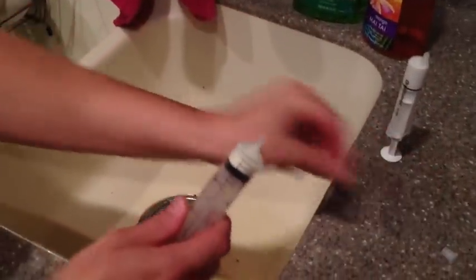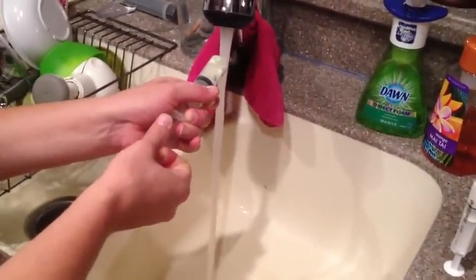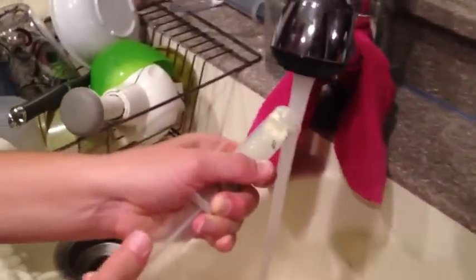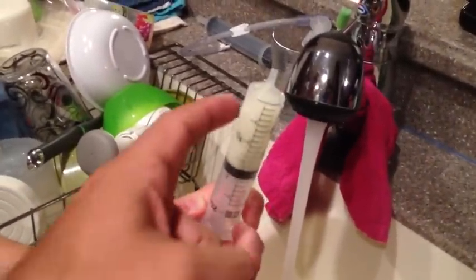What we'll do is take off the little cap. Turn on the faucet and turn it to warm water. Let that run for maybe a minute or two so that you can get warm water. You're going to stick the tip in the water and pull back on the handle, then put your finger on the end and shake it up. Once it's done shaking, pull the suction back just a little bit more to get the meds out of the tip.